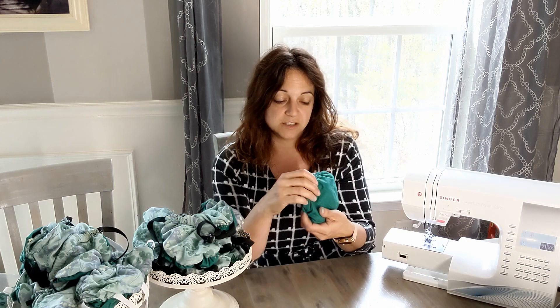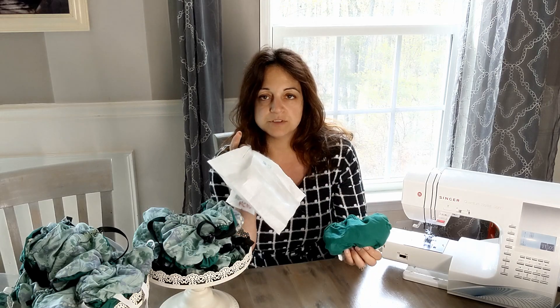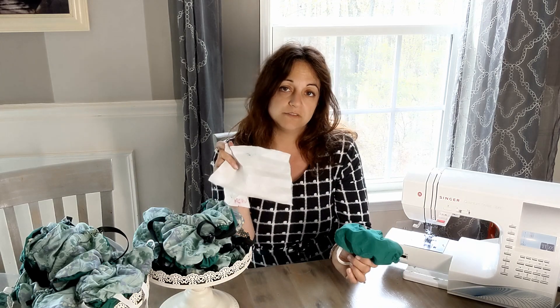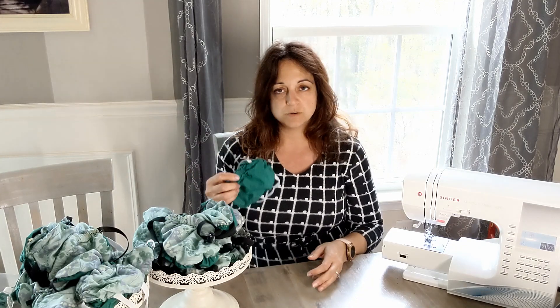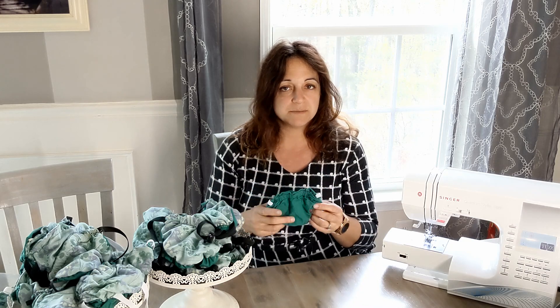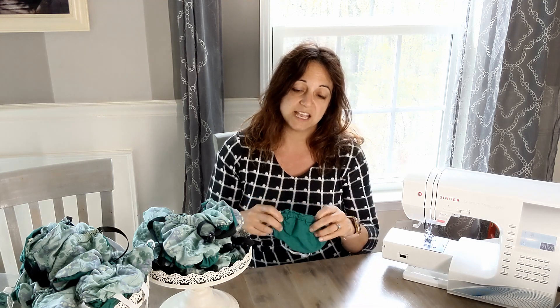When you remove your mask, carefully discard your filter material — throw it directly in the garbage and wash your hands. Assume it is soaked full of COVID particles when you're done with your day. Then you can throw the mask itself in the washing machine. The next day, take out two new filters and put them in the mask and start your day again. This can go in the washer and dryer — the nose pieces are holding up well. If you're working every day, I'd recommend having two sets of masks so you can wash one and have another clean one ready to go the next day.